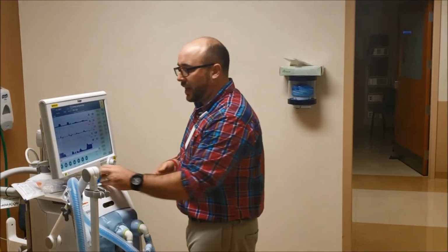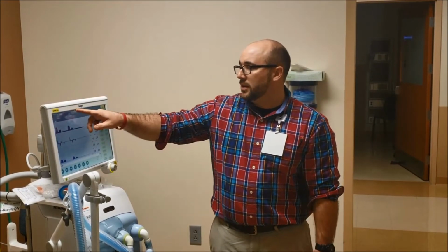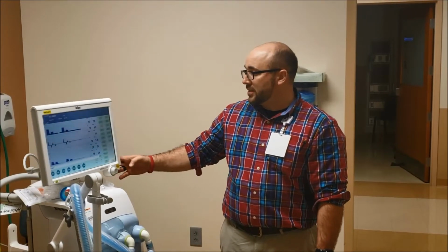Do we usually put inline on for your patients, or do we put it on after? Unless you're in ICU. So I'll show you the inline. I think you guys know. Do you straight suction then? If you're going to suction somebody, straight catheter. There's one really important part if you are going to straight catheter or suction any of them, and I'll show you that. That's the next button.